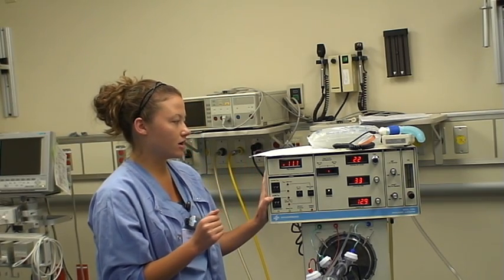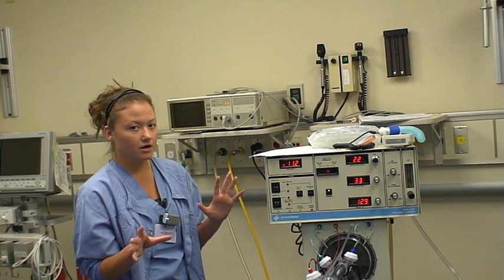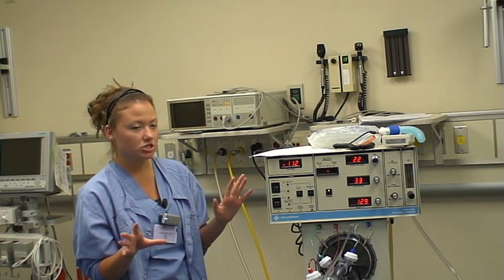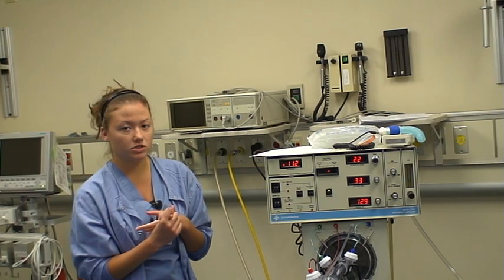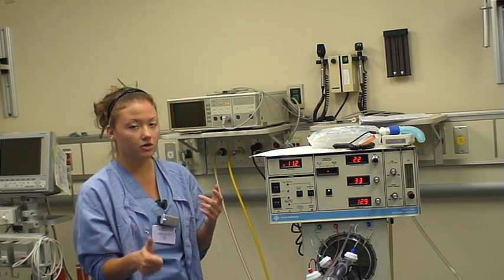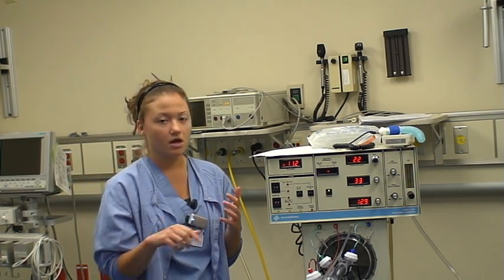The other thing you're going to want to monitor constantly is your blood gases. You're going to make changes to your oscillator depending on the values. If their pCO2 is high, you're going to want to increase your amplitude and decrease your frequency. If their CO2 is low, you're going to want to decrease your amplitude and increase the frequency.